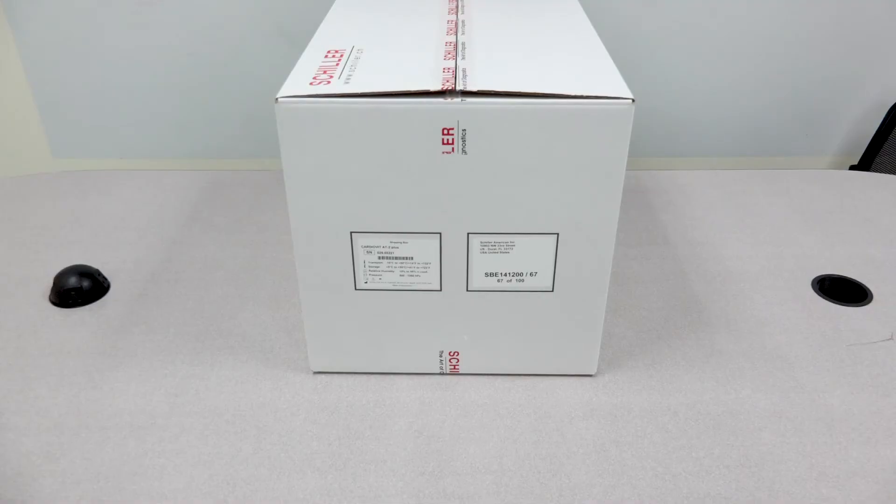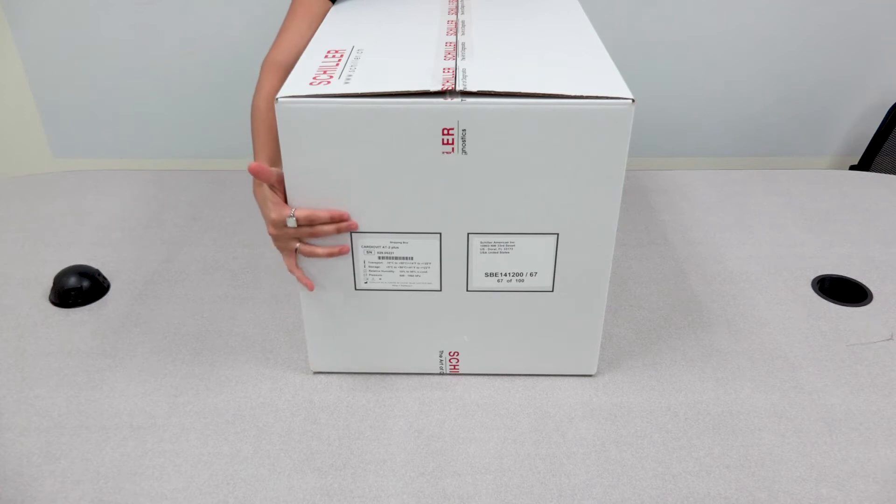In this video we will be demonstrating the unboxing of the AT2 Plus. You'll notice some labels at the front of the box indicating the model type and the serial number of your unit.